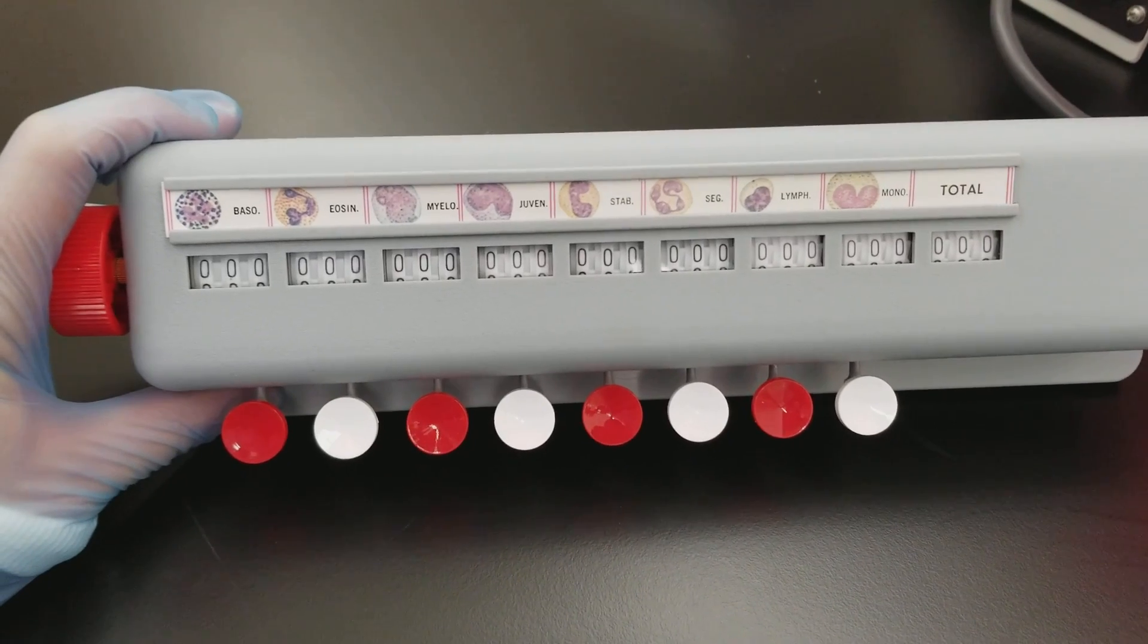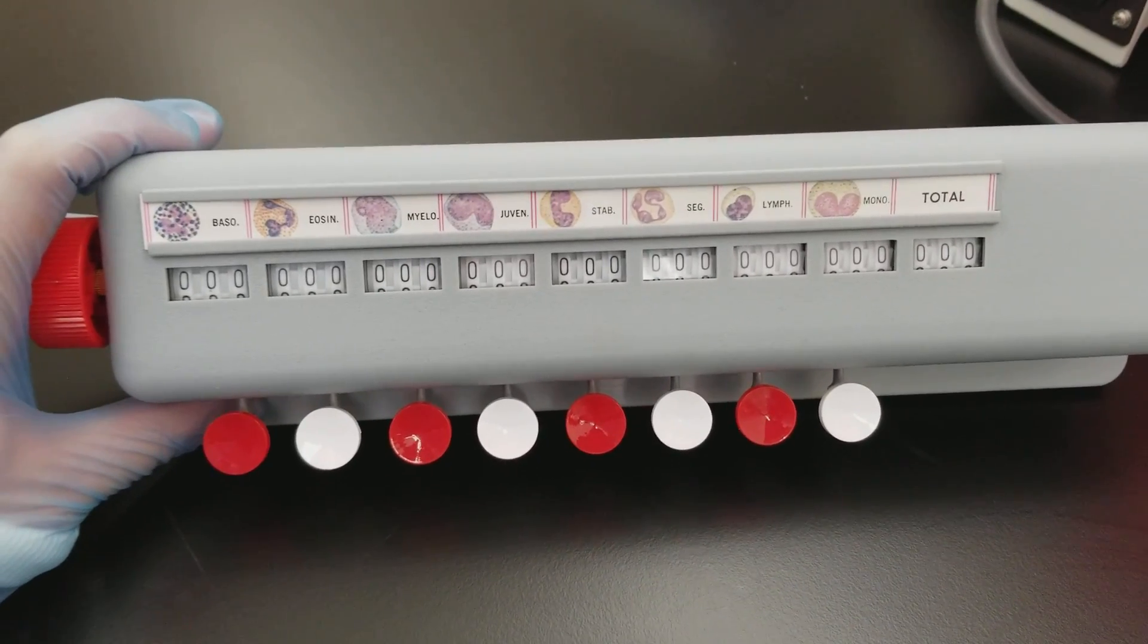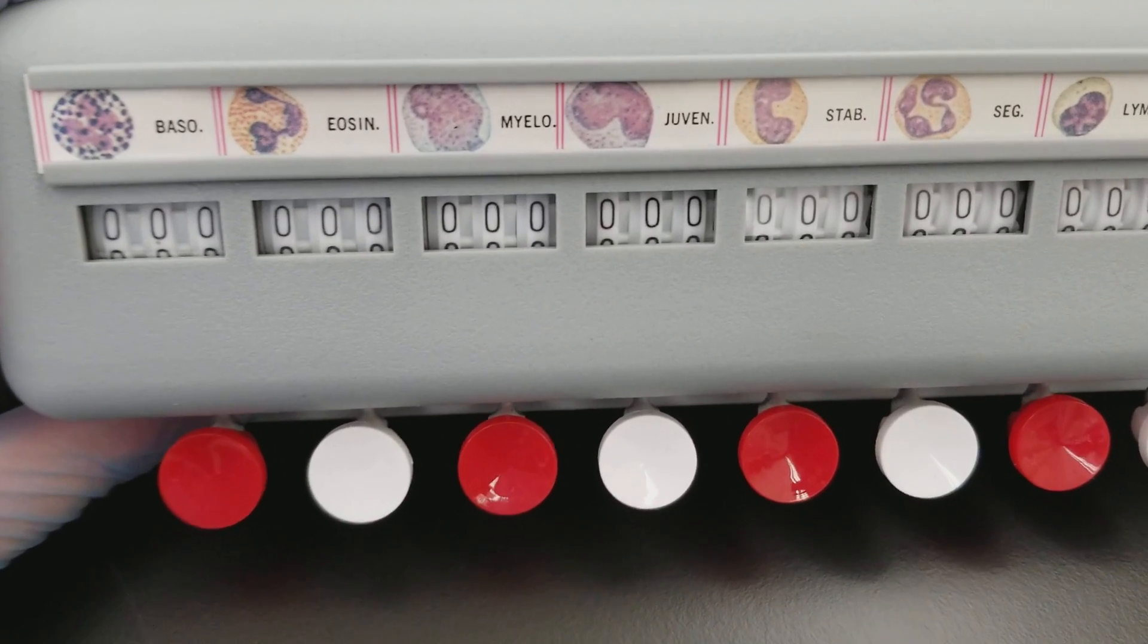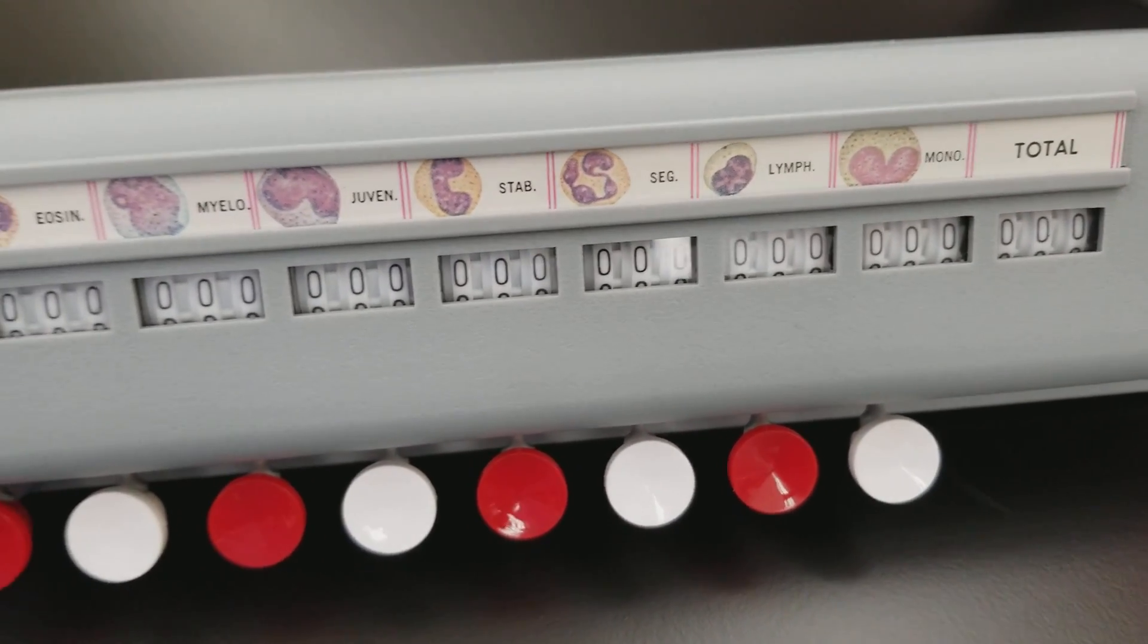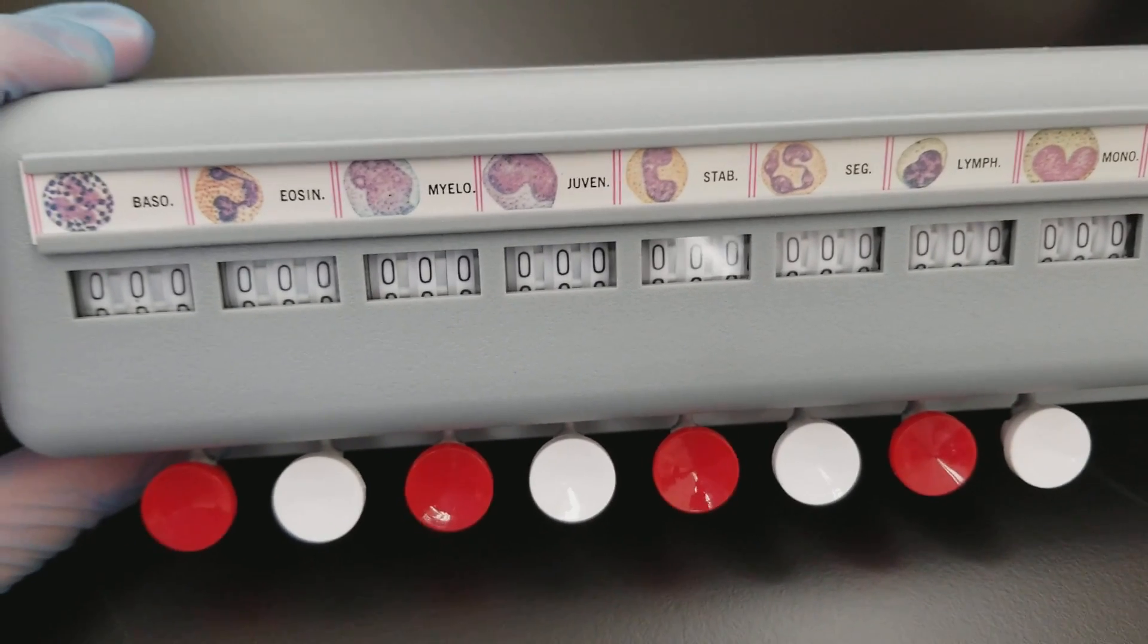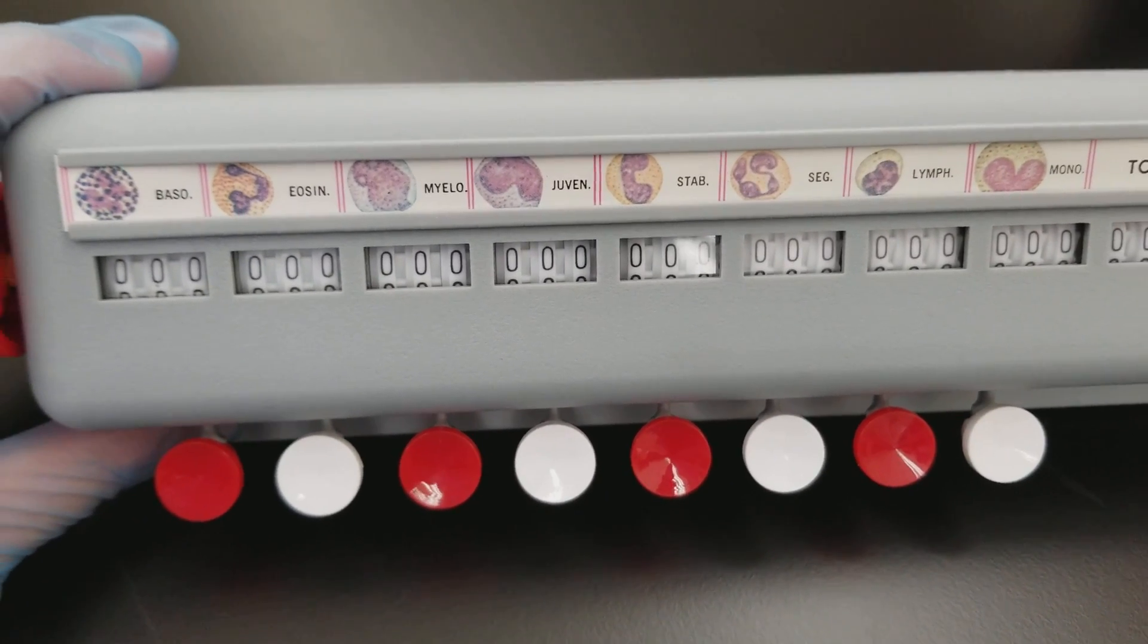But then you're going to be counting 100 white cells and looking at these different kinds of white cells. You're going to be counting what you have actually in the smear to see if your automated diff was actually correct.